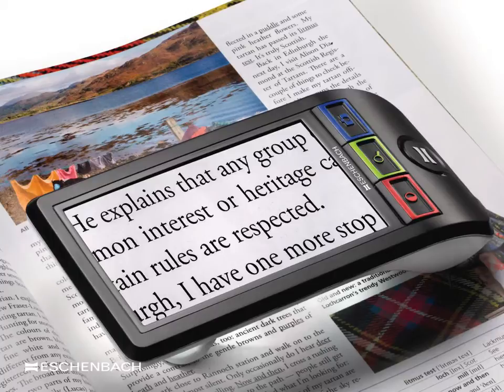From a practical standpoint, the larger the screen size, the larger the image may also be reproduced. In this picture, Eschenbach's SmartLux Digital Magnifier is placed over a column of print in a magazine. The image is then captured and digitally reproduced as the magnified image upon the screen. High levels of magnification are technically possible, but to produce a practical device that is portable with a large screen is a challenge for designers. The SmartLux Digital, however, benefits from a larger than average screen size for a portable device.